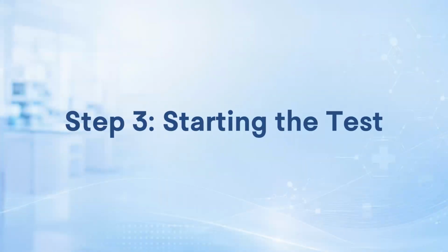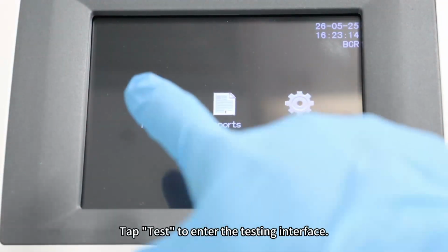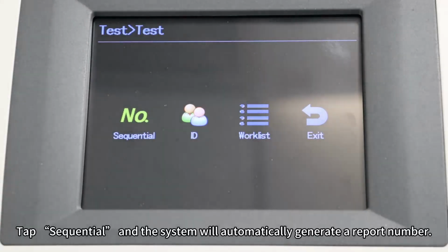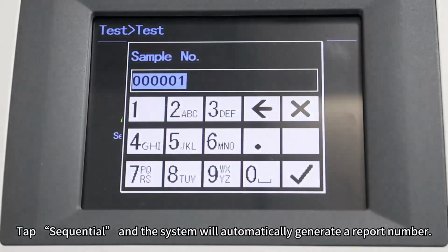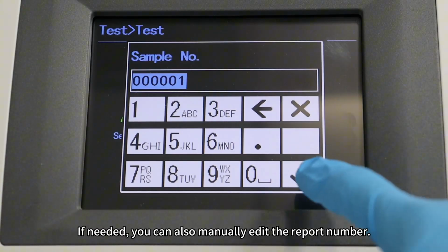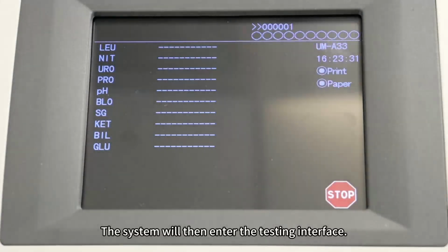Step 3. Starting the test. Tap Test to enter the testing interface. Tap Sequential, and the system will automatically generate a report number. If needed, you can also manually edit the report number. The system will then enter the testing interface.